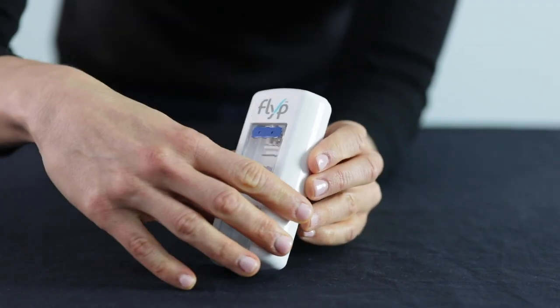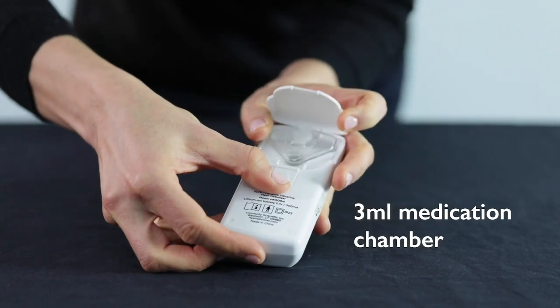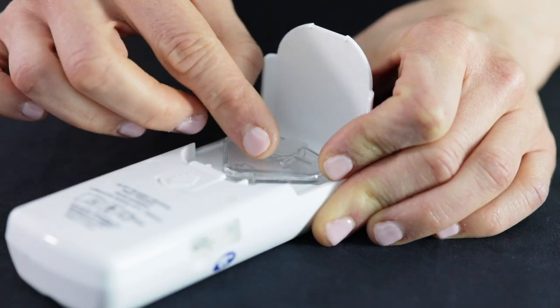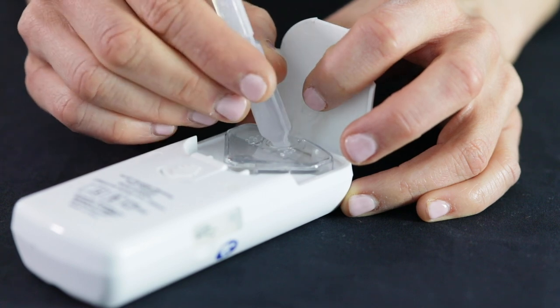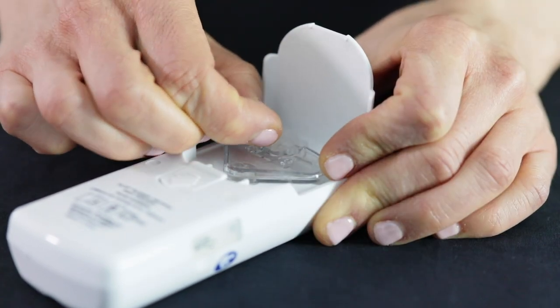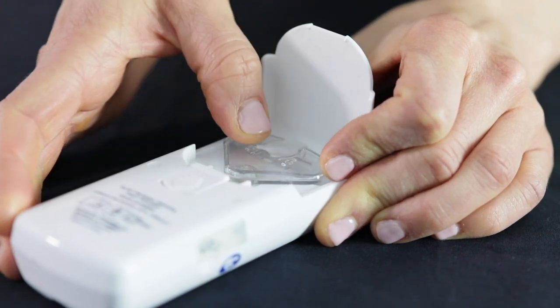The design of this product is intended to be tiny and as such the medication chamber is the smallest of the three — it holds a little over three milliliters of medication. To fill the medication chamber, open the back of the unit and flip open the plastic chamber. Fill the chamber and close by not just pressing down on the stopper, but by putting the inner lip of the stopper in at an angle and then pushing down.